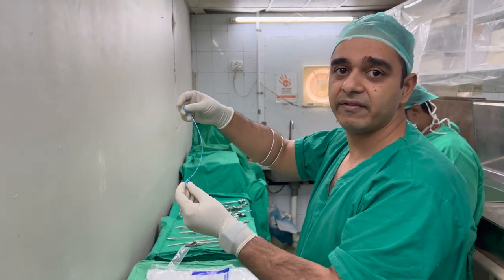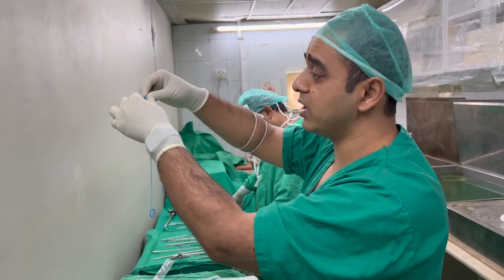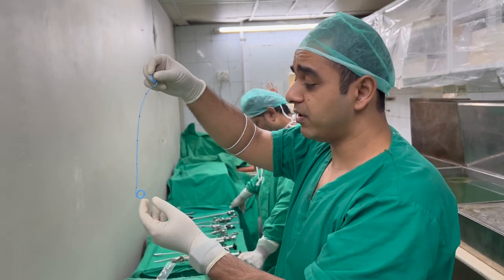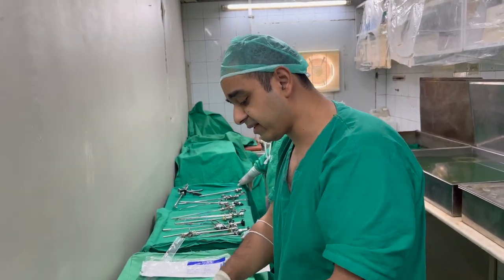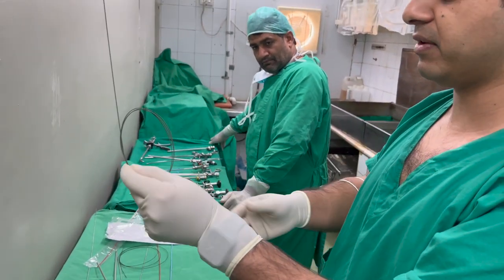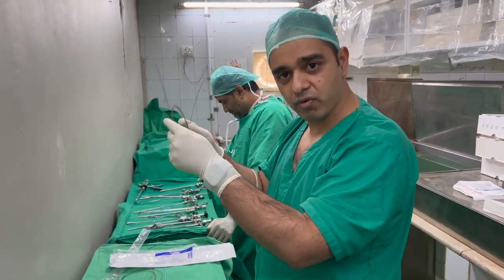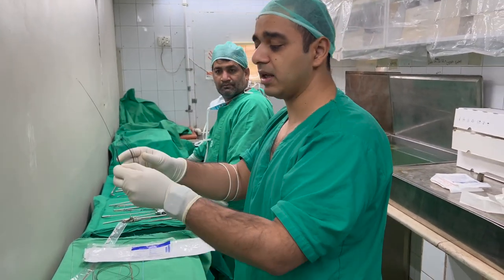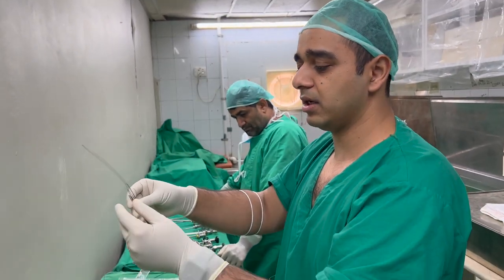It is called a Double J because it looks like a J on both ends. Some people call this a ureteric catheter as well, but mainly we use the name ureteric catheter for the external drainage. The DJ stent also comes in 4.8, 6, and 7 FR, and even for endopyelotomy there is a 14 FR DJ stent — 14 FR at the top and 7 FR at the bottom — called an endopyelotomy stent. This DJ stent has to be removed after six weeks maximum, because otherwise there is incrustation and stones will form over it.